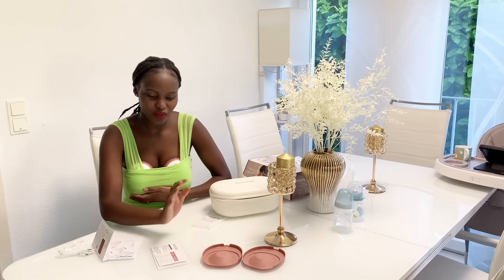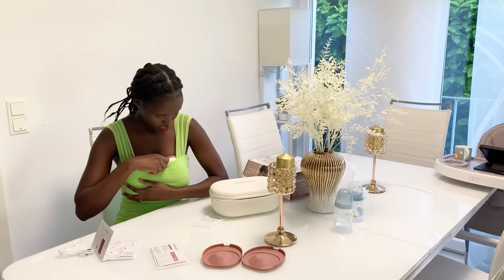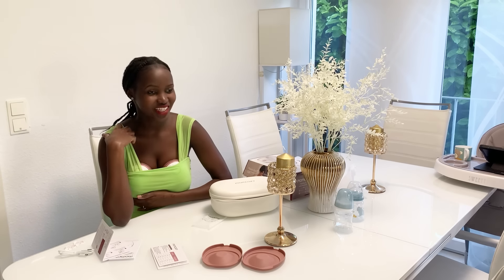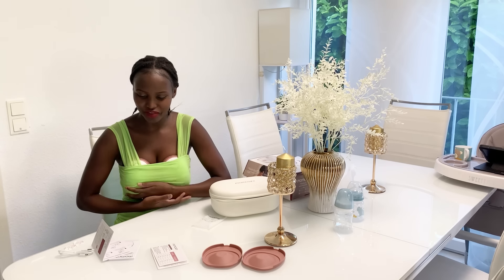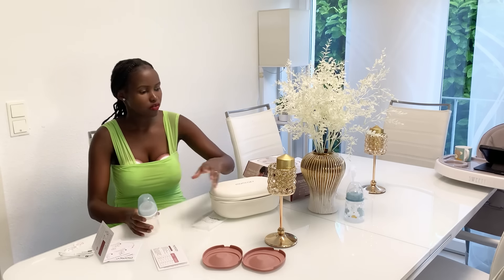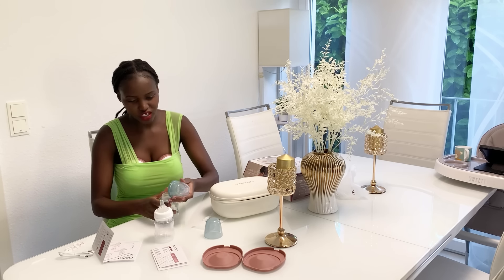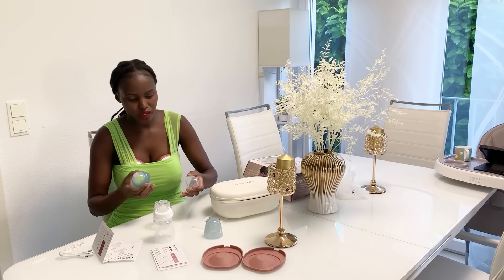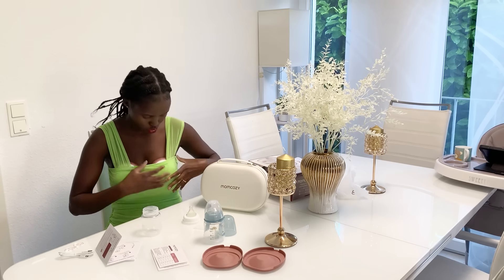This is so comfortable — I don't even feel bothered by it at all. If you want to increase the suction you just press the button and you get your milk to feed your baby. Miguel is crying already so I think I'll just stop pumping at this point. The suction is really strong — that's why so much milk is coming out. When it's pumping it shows you how many minutes it has been going, and once it reaches 30 minutes it automatically switches off.